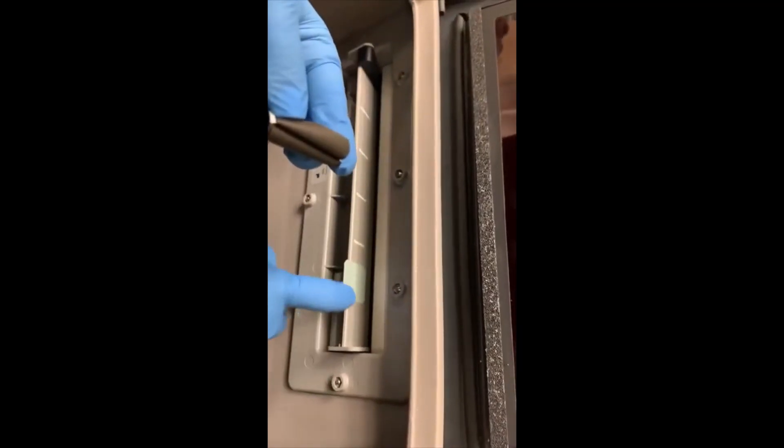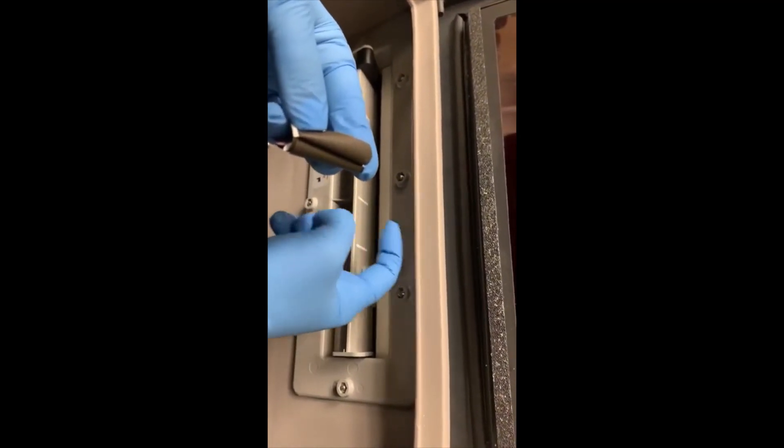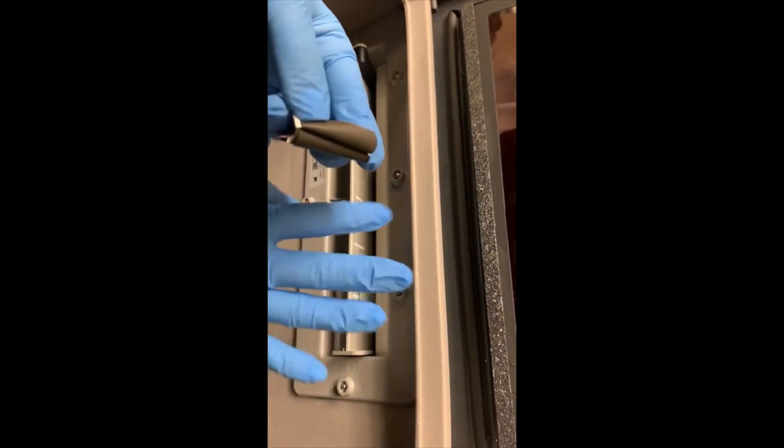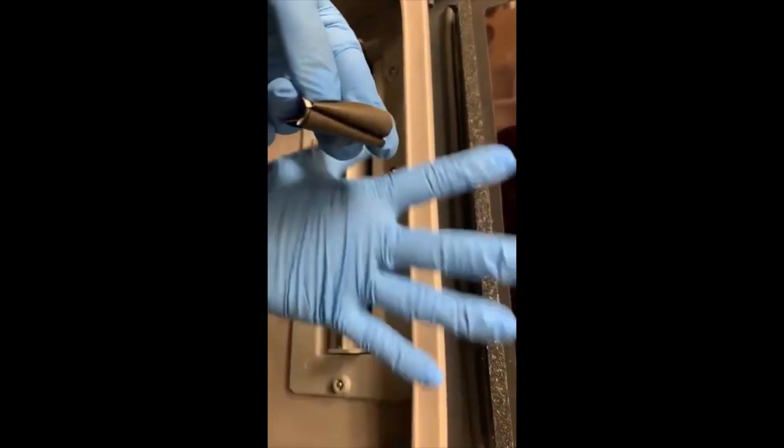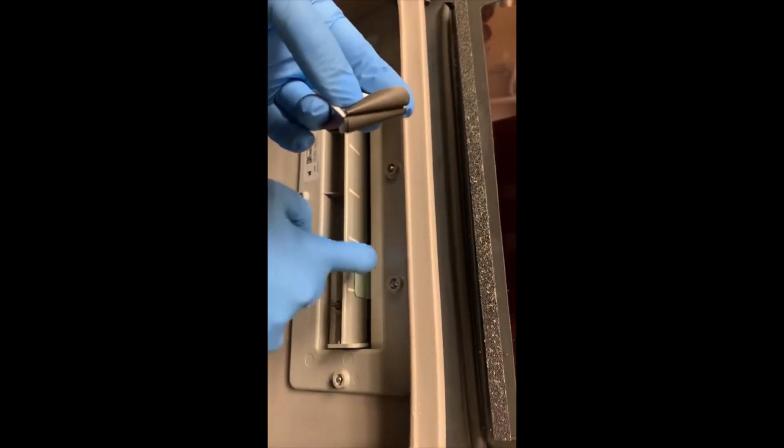You're going to shove that little piece of film in until you feel those rollers grab it and take it. You don't want to open this screen here until that piece of film has gone all the way in and you can no longer feel it on this ledge.